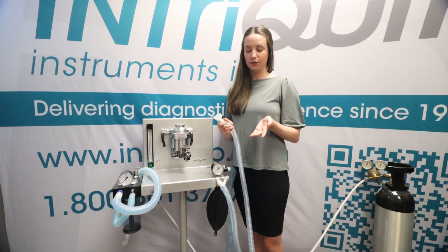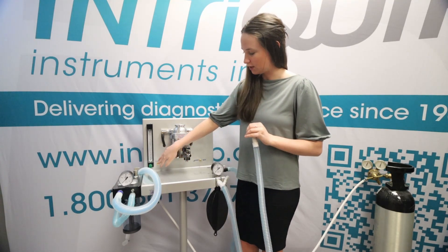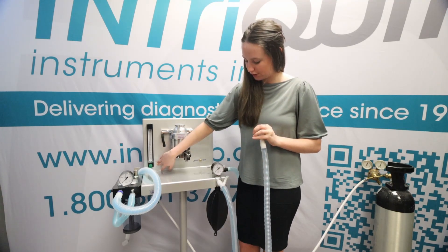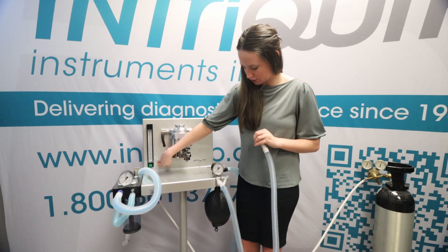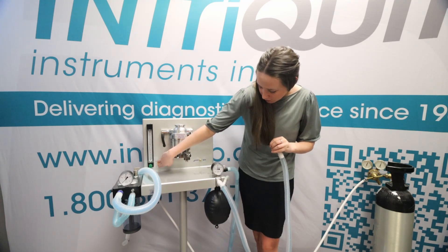Next, make sure that the pop-off valve is turned to closed. Next, you're going to occlude the end of the hose with your palm just like that. I'm going to go over to the flush button and we're going to press it to pressurize the circuit to 15 centimeters of water. Press it and watch the bag inflate.